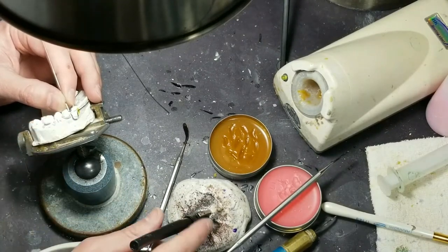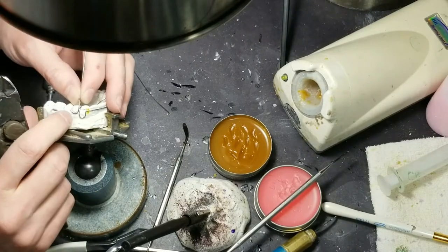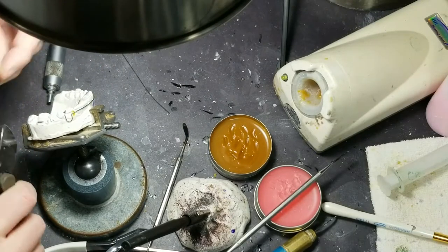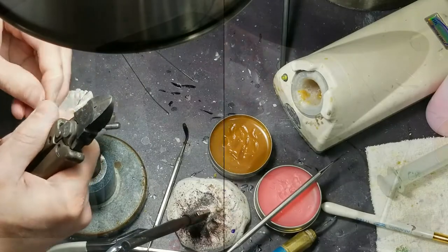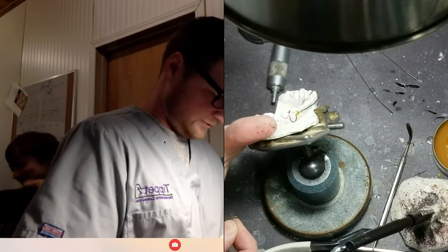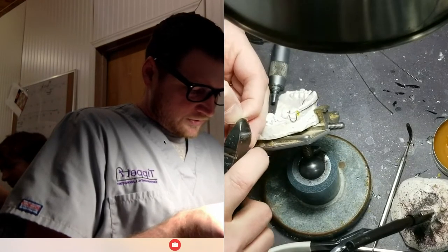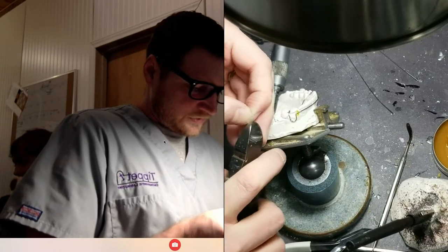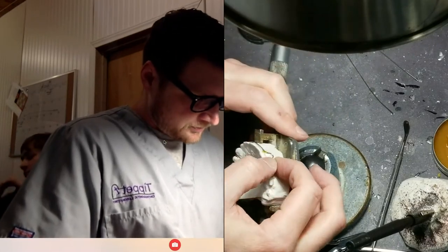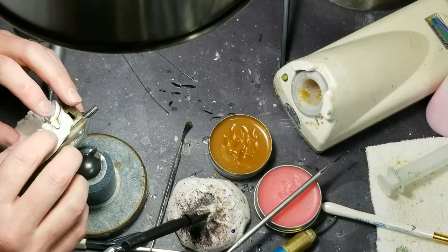So I'm going to mark it right where it stops touching the wire. I have my 90-degree bend, the wire's going parallel with the labial bow wire, and I'm going to make my cut. I'm wiping off that little mark — you can see black stuff all over my fingers. One thing you can do is either use a burr or a stone wheel and you can scratch up this piece of wire so the solder has a little bit of grip, a mechanical bond. I like to use the wire cutters — it's a little dangerous because you could cut the wire, but if you know what you're doing, no big deal. Notice I'm holding it flat.